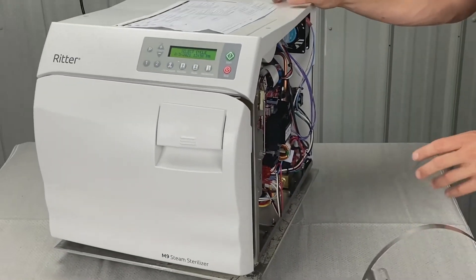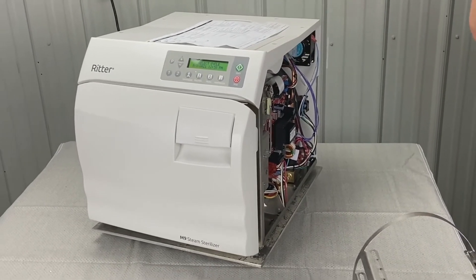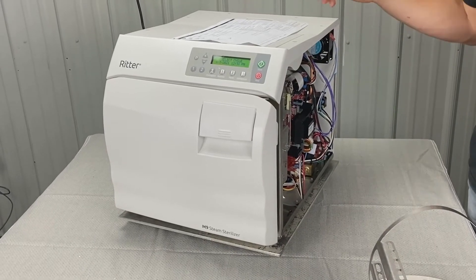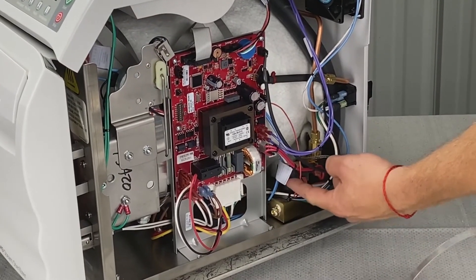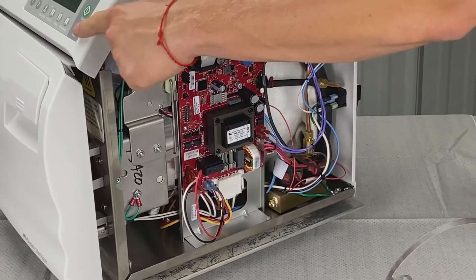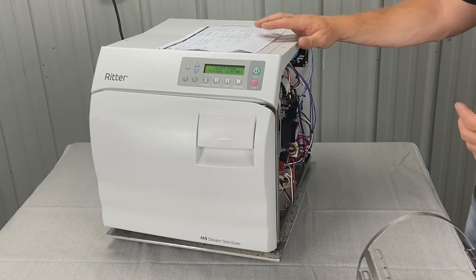Last case, it could be the PC board — though I don't think it's that. As we see in the manual, it says PC board malfunctioning, verify voltage to fill valve, and perform fill valve supply voltage test. Basically, put it into service diagnostic mode, unplug the two wires, plug a voltmeter in, engage the valve, and make sure power is going in. That's probably a job for a technician, but if you're handy we'll walk you through it.